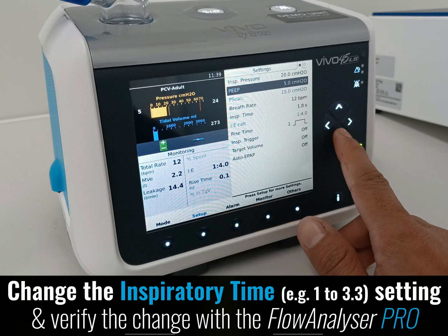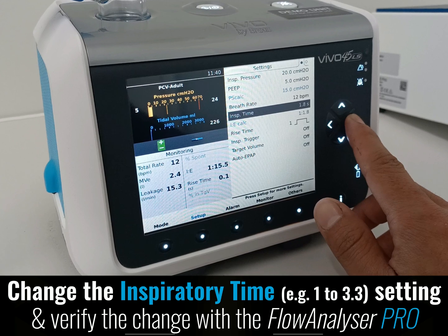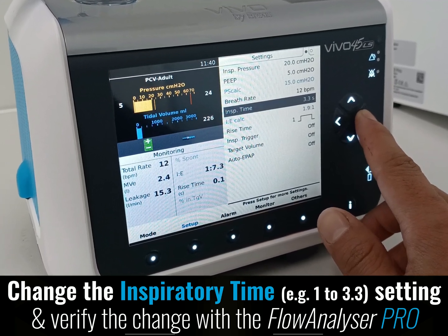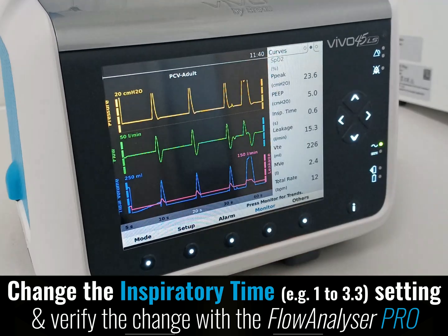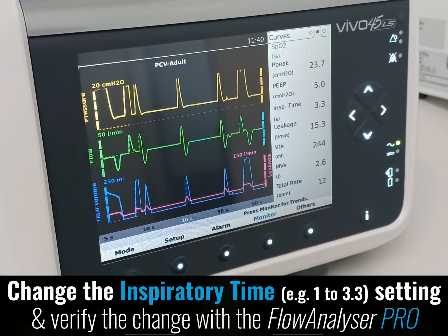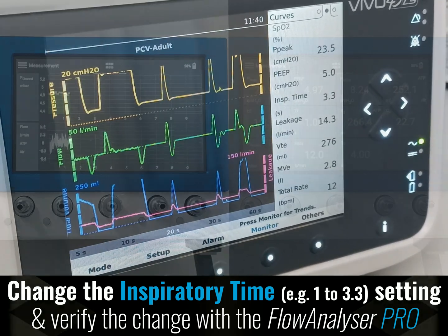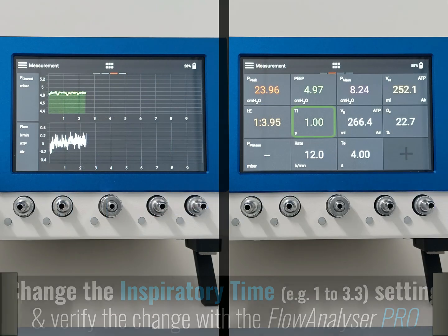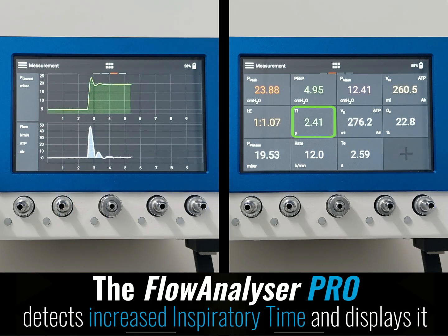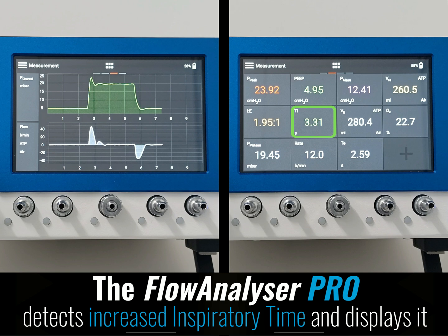Change the inspiratory time setting from 1 to 3.3, and verify the change with the analyzer. The Flow Analyzer Pro detects the increased inspiratory time and displays it.